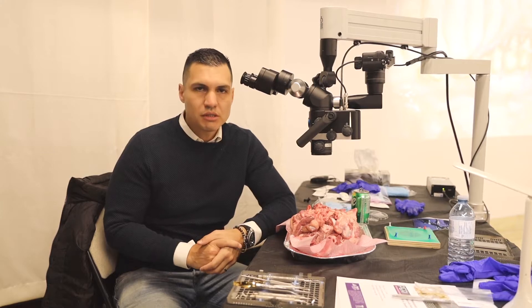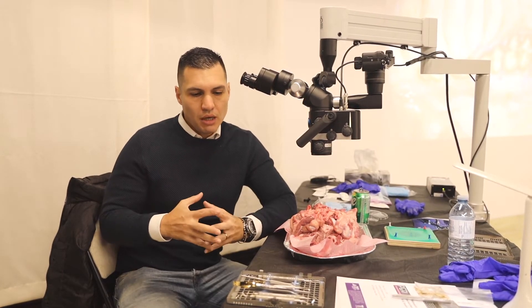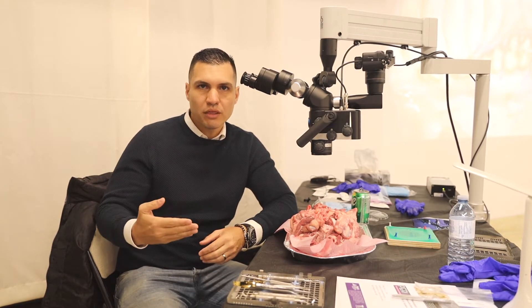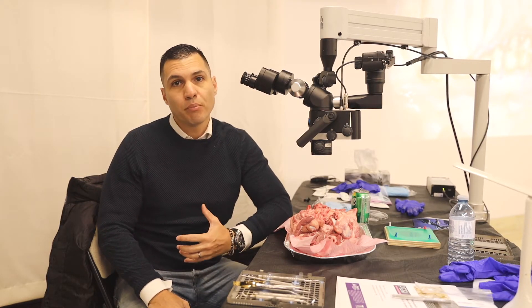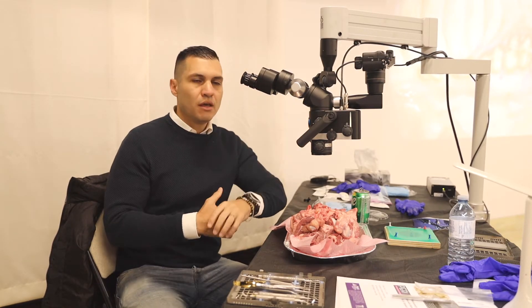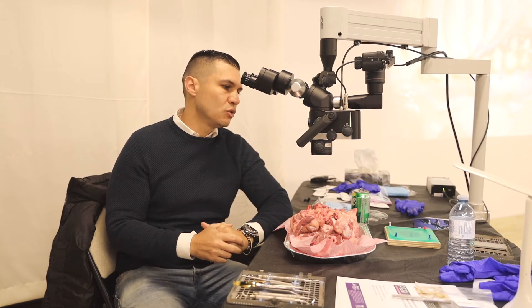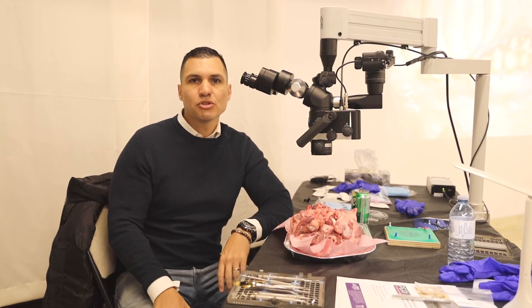It's simple to use, it's easy to handle, which is completely different to what we want to do, because we need something easy to work with for complex procedures, and for me, that's the most important part. One microscope, really smart, really small, and you can handle it easily, adapted easy to you, and you can achieve different magnifications through the surgery and according to the procedure.